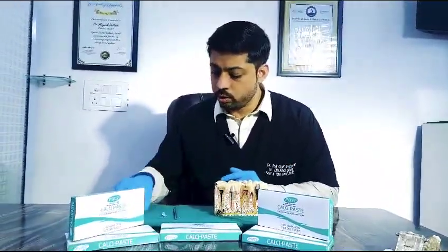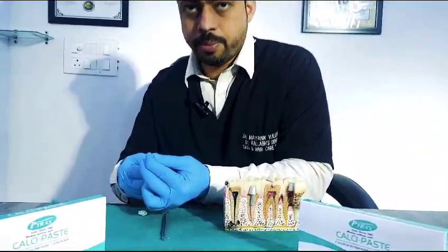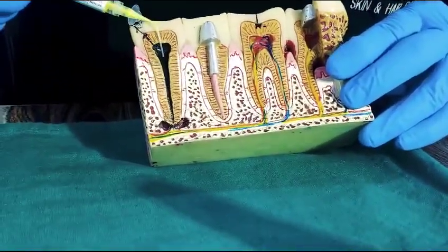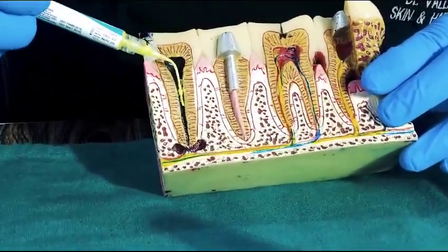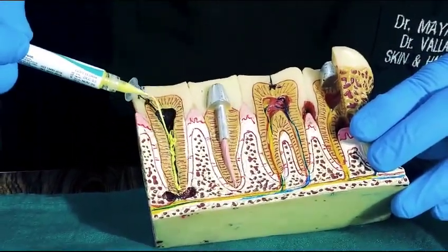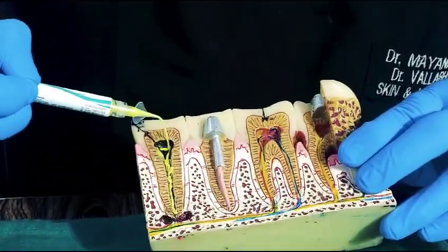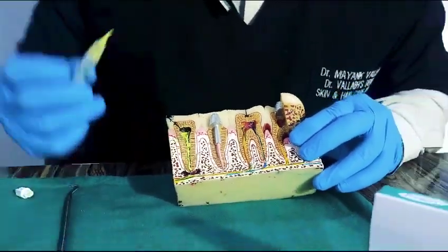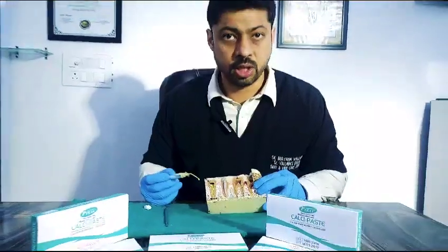All you have to do is uncork it, put an applicator strip, put it into the canal, dispense it, fill it as good as possible to the best of your abilities. This product is absolutely radio-opaque. Let it be there as per the need — maybe a month or a week depending upon the case and the situation — and your patient is going to be very happy. We can also use this for apexification, apexogenesis, and other procedures.